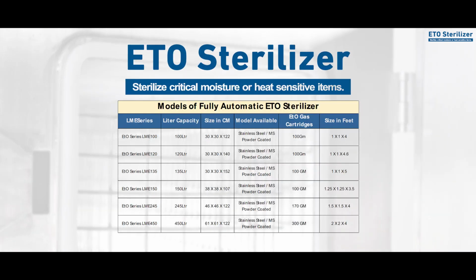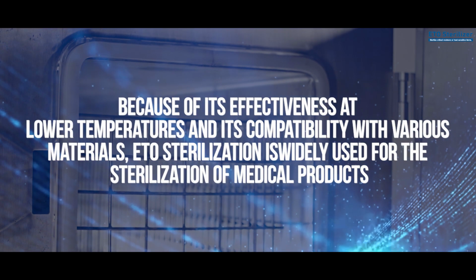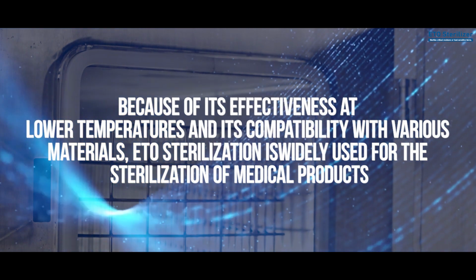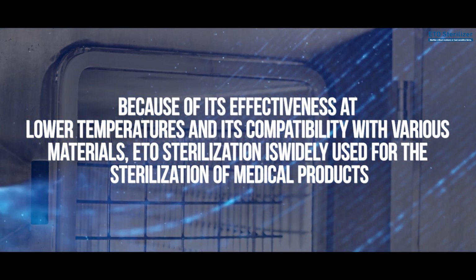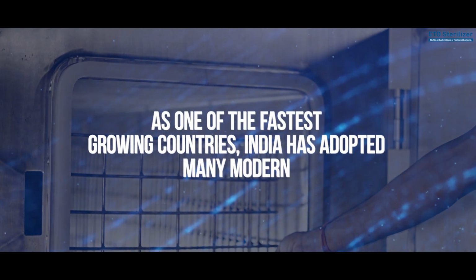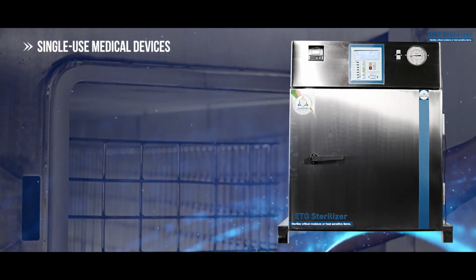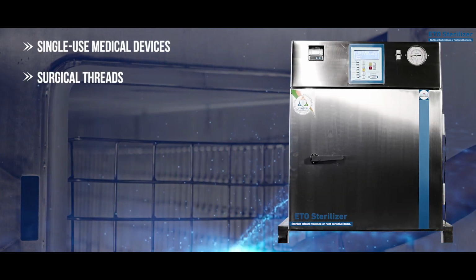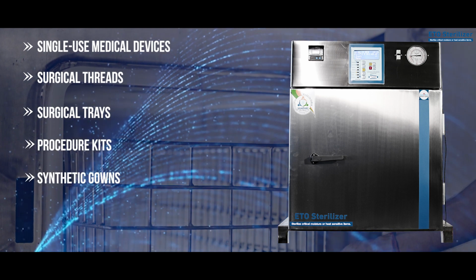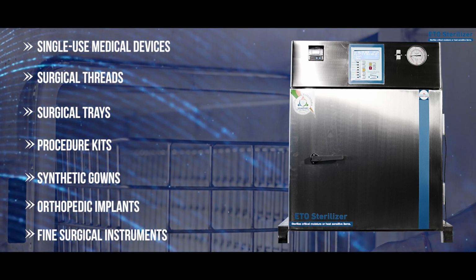Ordering information and selection of LuxMed ETO sterilization. Because of its effectiveness at lower temperatures and its compatibility with various materials, ETO sterilization is widely used for the sterilization of medical products. As one of the fastest growing countries, India has adopted many modern, single-use medical devices, surgical threads, surgical trays, procedure kits, synthetic gowns, orthopedic implants, fine surgical instruments.